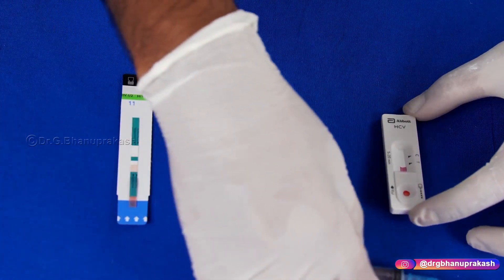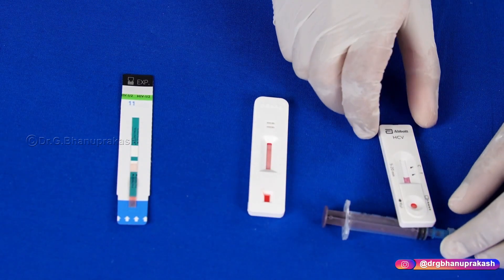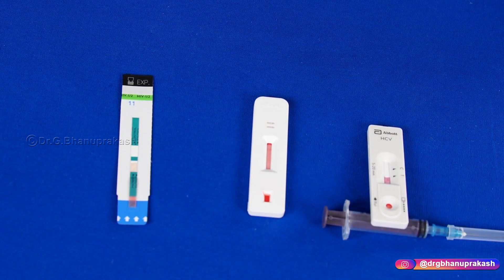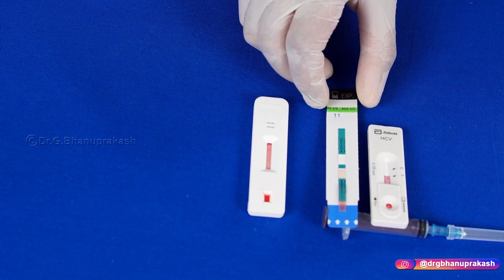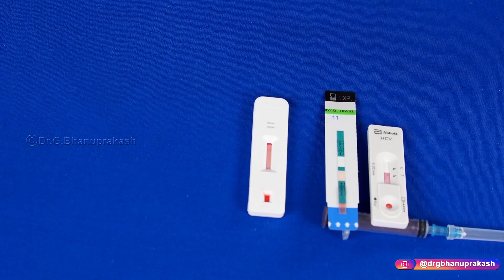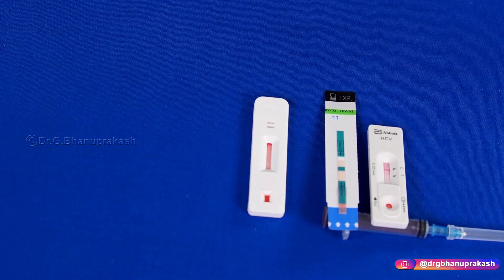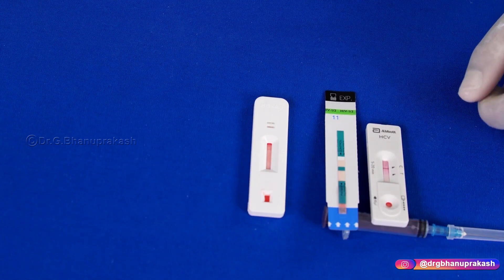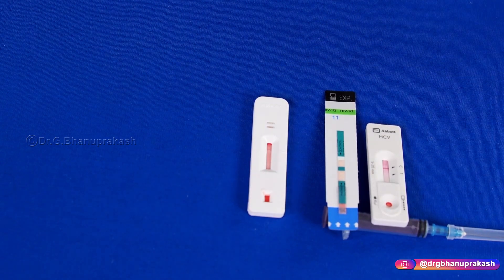It is necessary that we elevate the kits so that the fluid flows down quickly. The serum coming down may be slow, so we elevate them too. As you can already see, the HCV test kit result is done. Now let us wait for HBsAg and HIV to run.